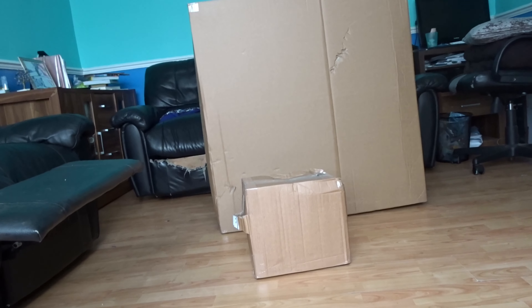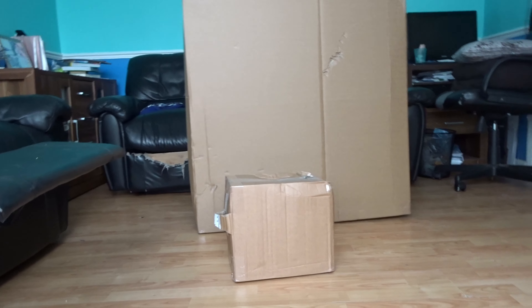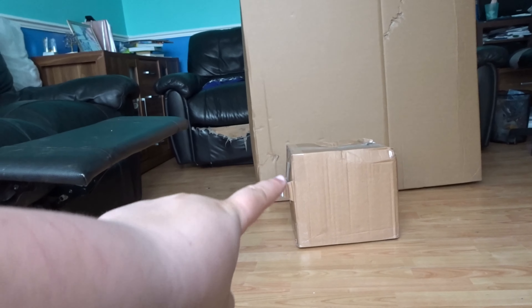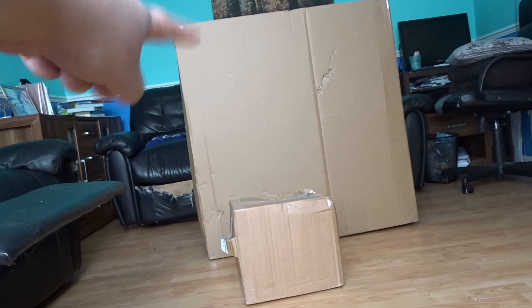I've had people ask me to do an unboxing video on my wheelchair, which I'm totally happy to do. But let me tell you, it is so heavy. That tiny box there must have the battery in because it is really heavy. And that one must be the wheelchair.